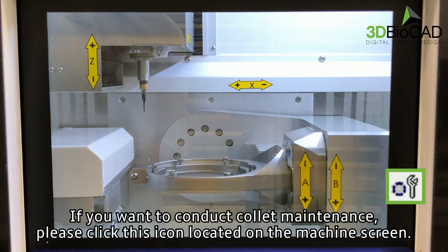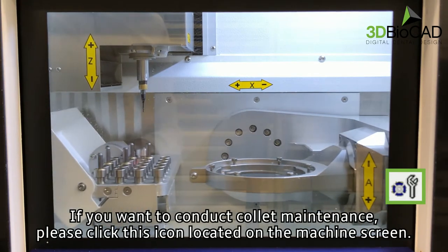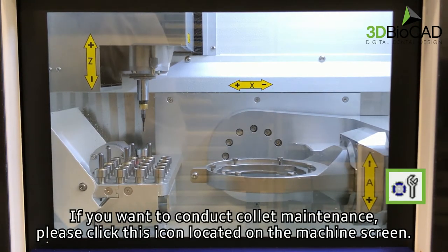If you want to conduct collet maintenance, please click this icon located on the machine screen.